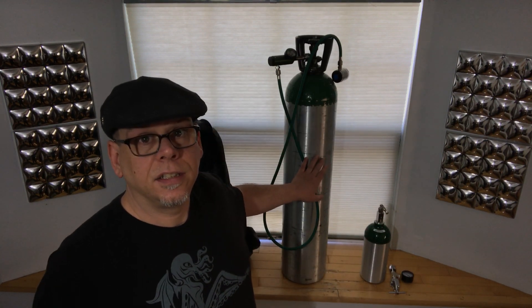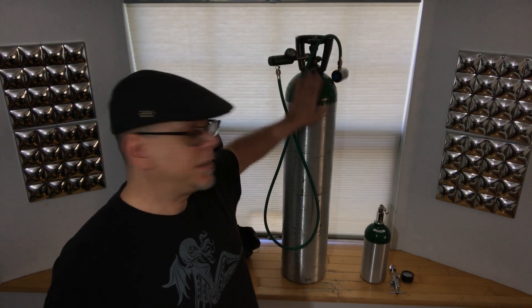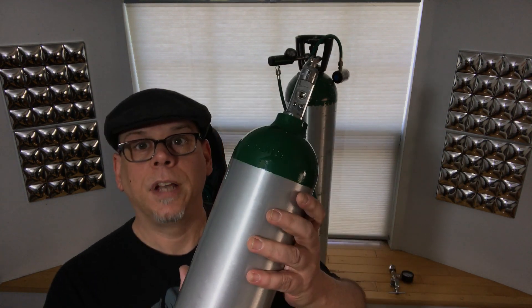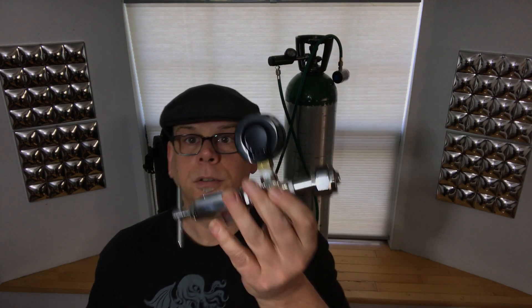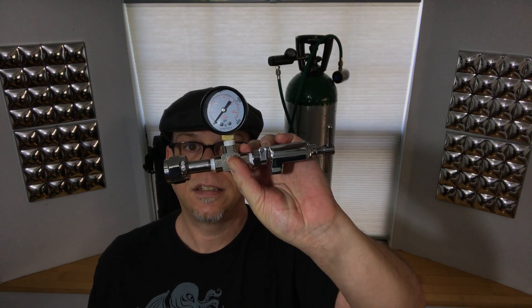So here are my tanks. This is my main tank, and this is my travel tank — a tiny little guy. You can fill this one up from the big tank using an adapter like this.